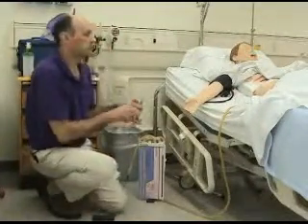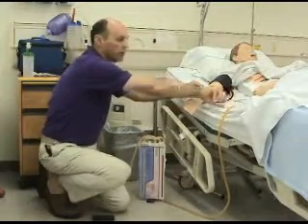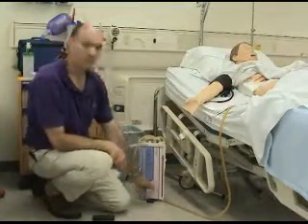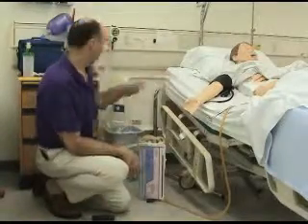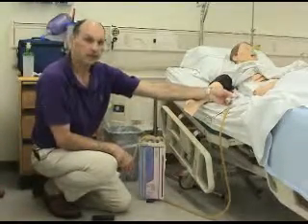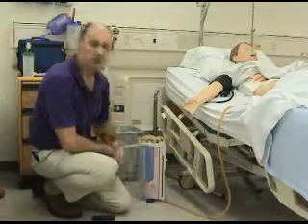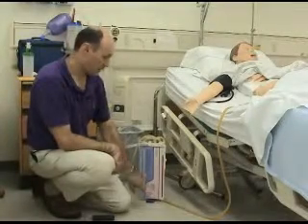But expect the students to, as you taught them in class or in the reading, go down and identify that this is where the air leak occurs because the water stops bubbling in the water-sealed chamber. So to remedy that, you would want the student to take more tape and tape the connection and then release the clamp, and that would resolve the air bubbling in the leak in the water-sealed chamber.